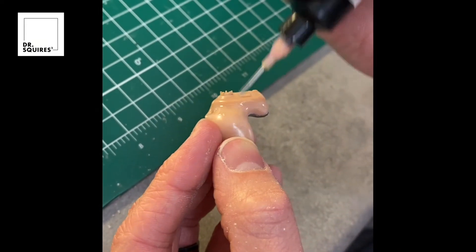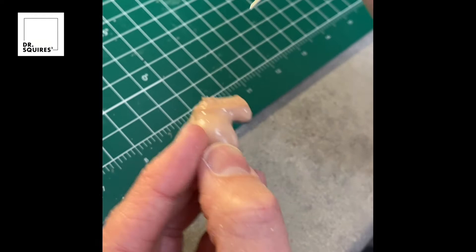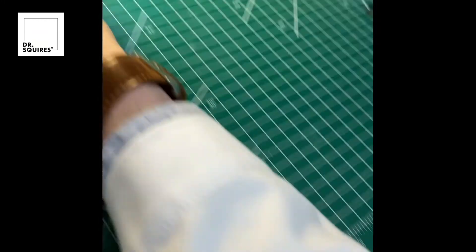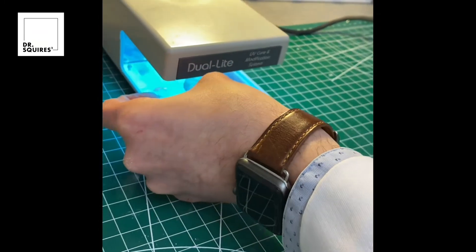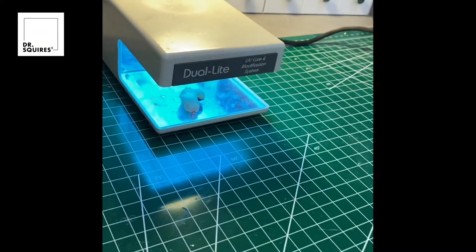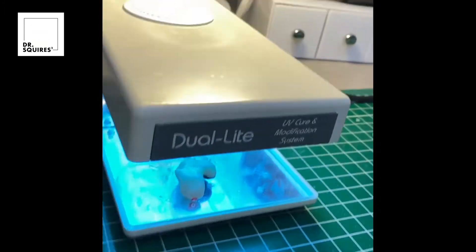The other side is done and we will stick that back in and let it bake for just a couple minutes.